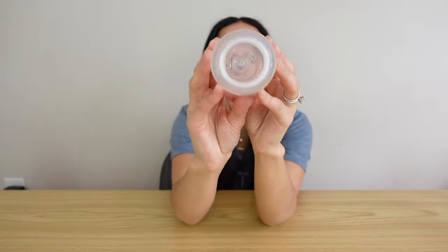One con I do have is that their bottle isn't a wide-neck opening, so I find it a little bit difficult to clean inside the bottle, and when you're cleaning it with a brush it can splash everywhere. That's really the only con I have, and honestly it's not that big of an issue. Now I'm going to be inserting the actual sound that this pump makes when you're in the middle of a pumping session.